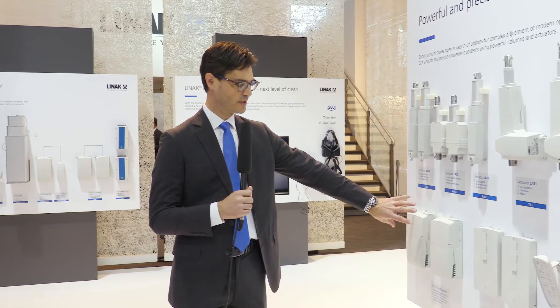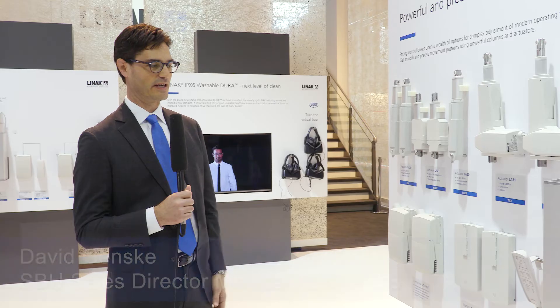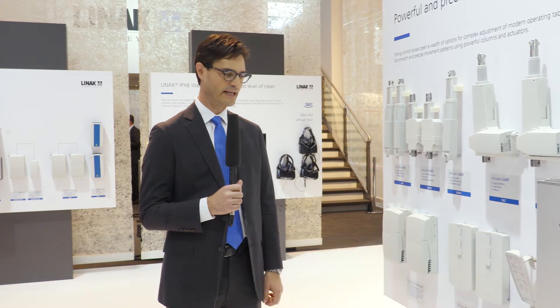The highlight here is really featured on using two separate control boxes in combination to provide additional functionality to the operating chair. These two control boxes are linked through a feature we call CO-Link.